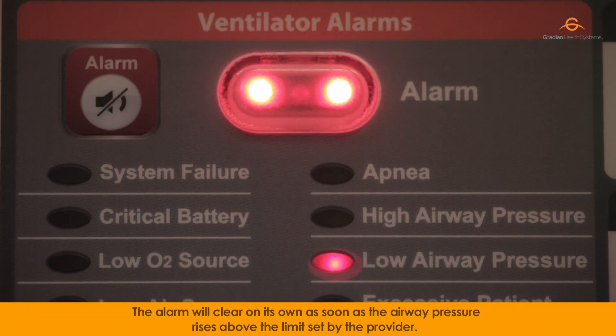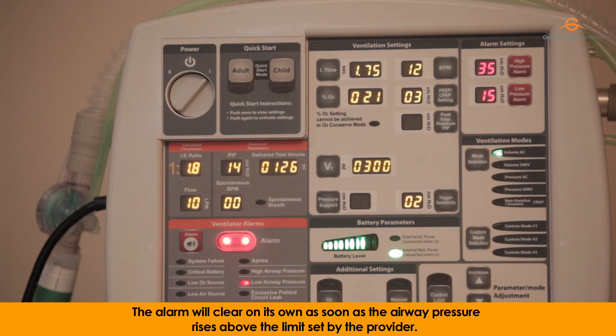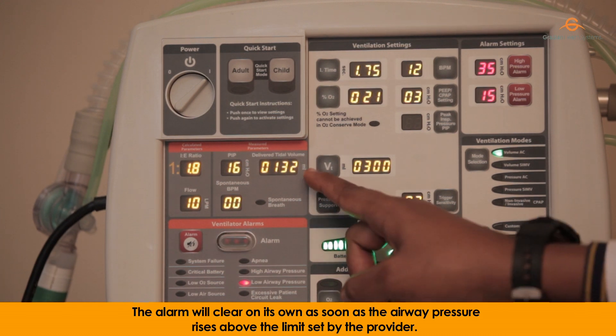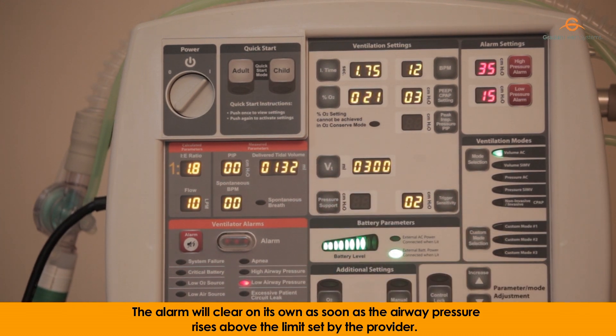The alarm will clear on its own as soon as the airway pressure rises above the limit set by the provider.